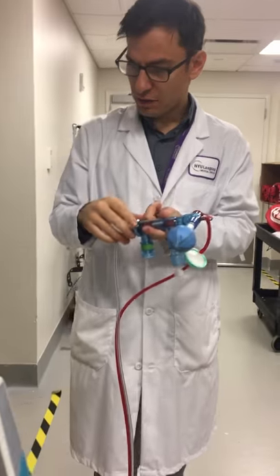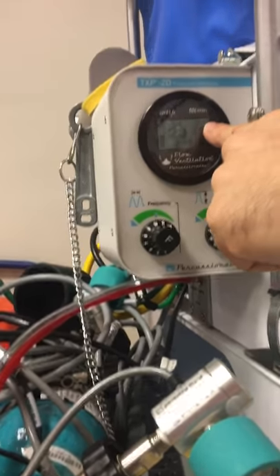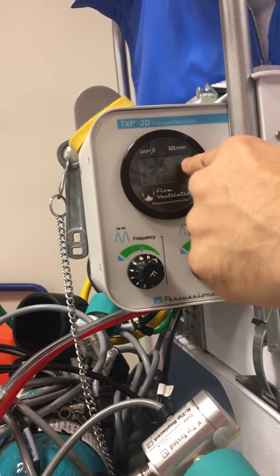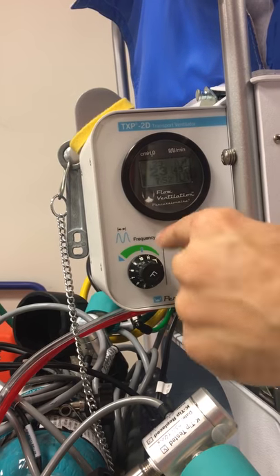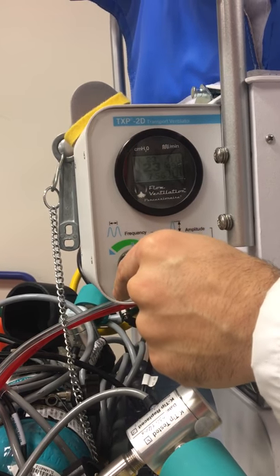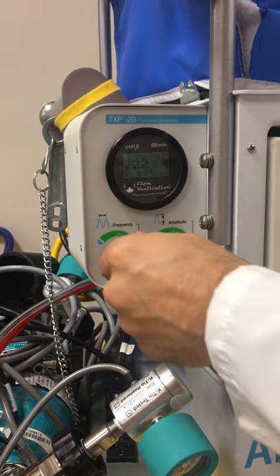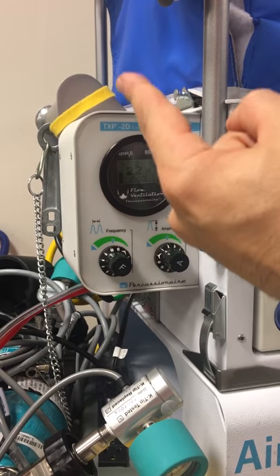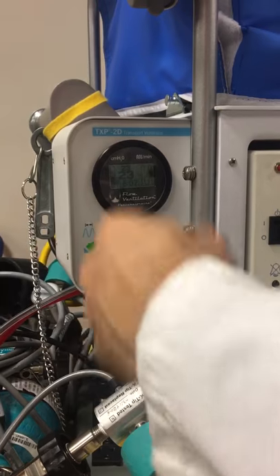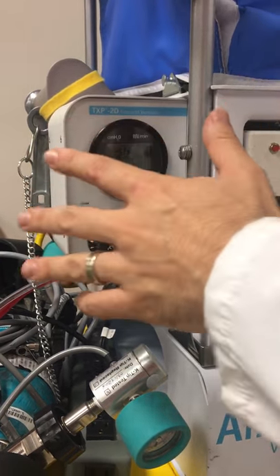We can see right here on our monitor what we're monitoring — it's very simple. We're monitoring frequency and mean airway pressure. Frequency is 497; we knob our frequency knob right here. 500 is a decent starting point for frequency. If we increase the frequency, we are improving oxygenation. If we decrease the frequency, we're blowing off CO2. You kind of edge towards where your goal is.